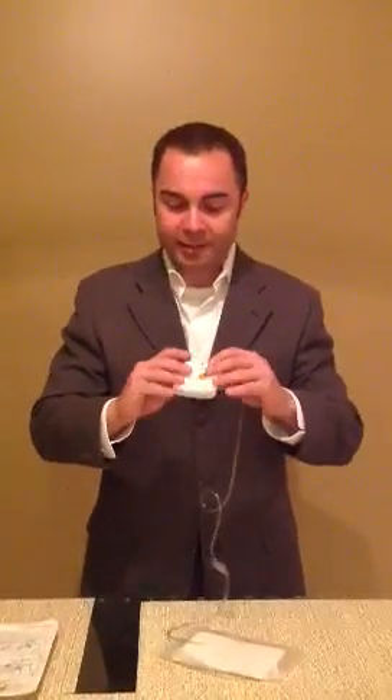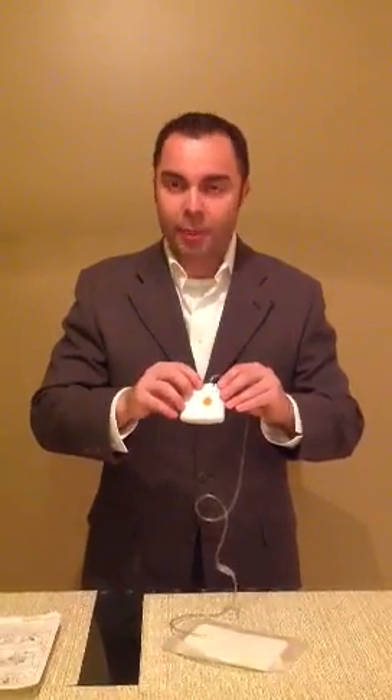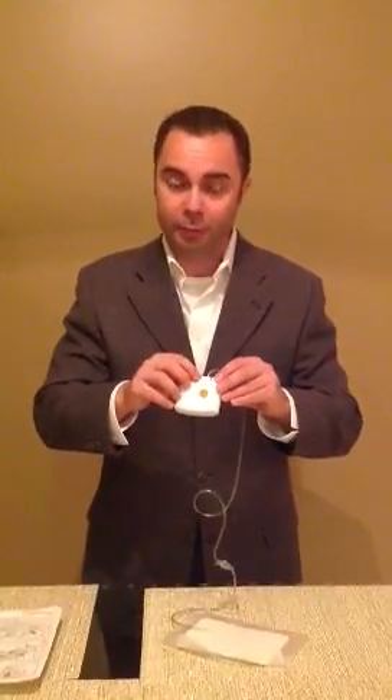When working with this device, it has two AA batteries, so be aware if you ever need to change them. It has an on-off switch and an okay light to indicate it's working. With the green light, it'll be on and flashing when it's working. If there's a leak, it'll change to an amber color. The battery light will also change to amber when the batteries need replacing.